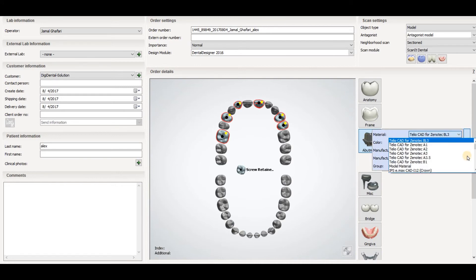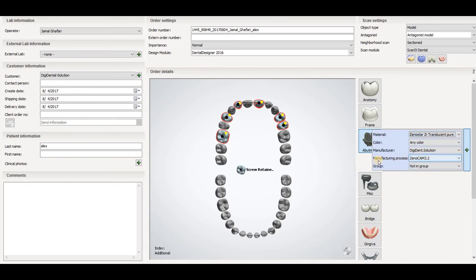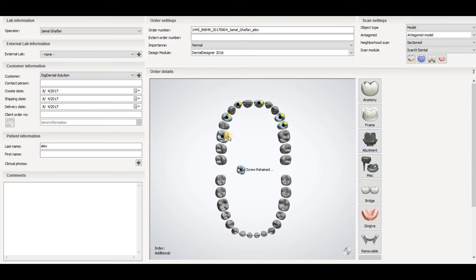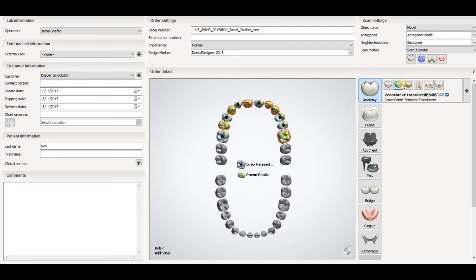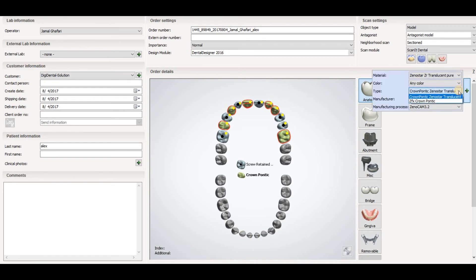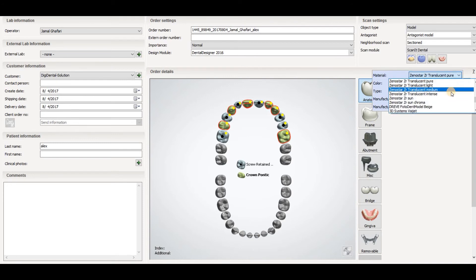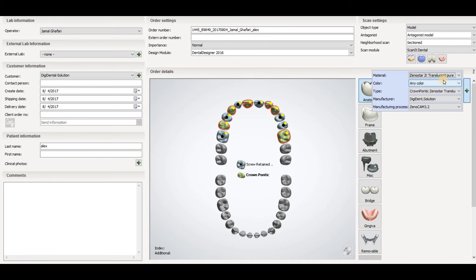After that you have to select the material — what material are you going to use. Then select the manufacturing process. These are two main things: the material and the manufacturing process are selected according to your milling machine. After selecting the implant crown settings, you select the pontic for the remaining teeth, choosing the same material and the same manufacturing process as you selected for the implant crowns.